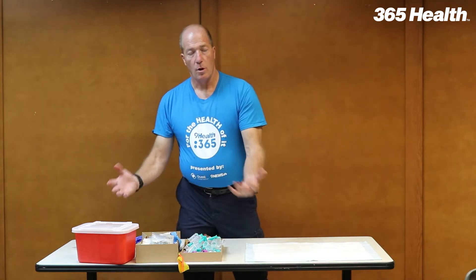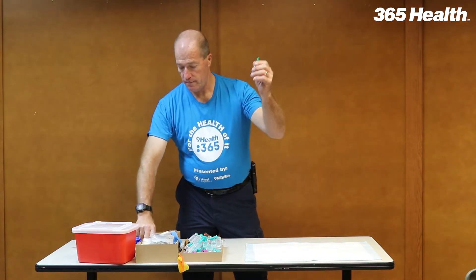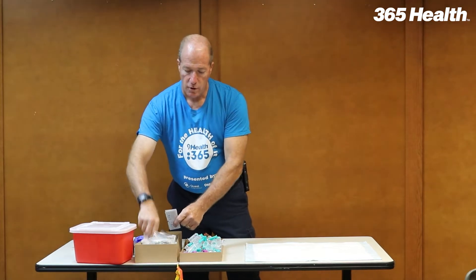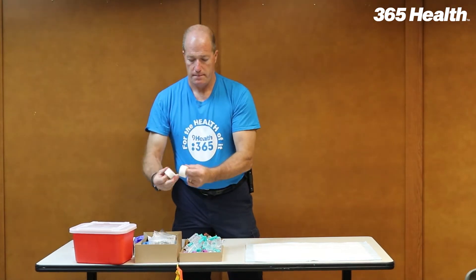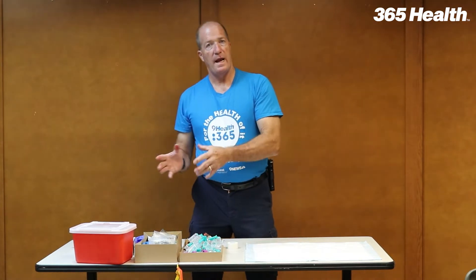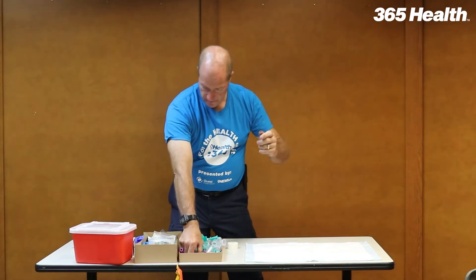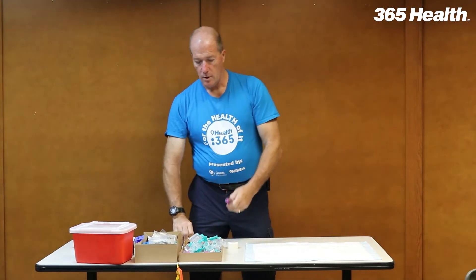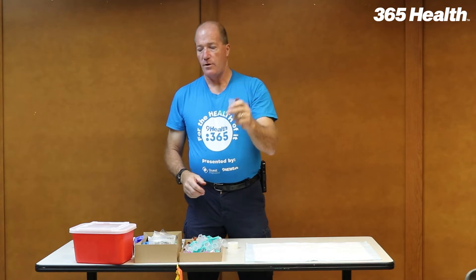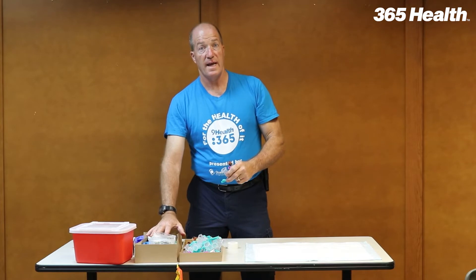In the kit, you'll open it up. You'll have your needles, your alcohol, your tourniquets, your gauze, and tape. You'll have all this to set out for each of the tables. In a separate package, you'll have your SSTs and your purples. You'll also have your vacuum hubs, and you'll have to set that up in your box in addition to what was set in this box.